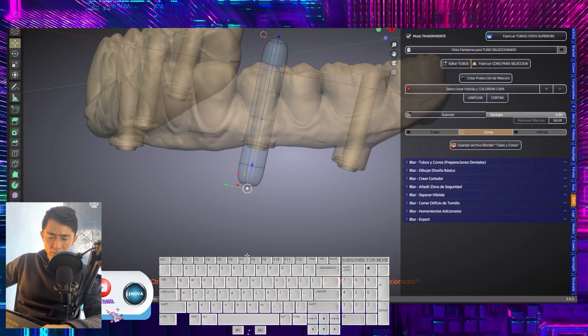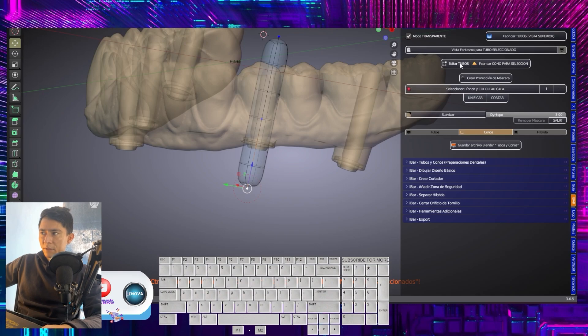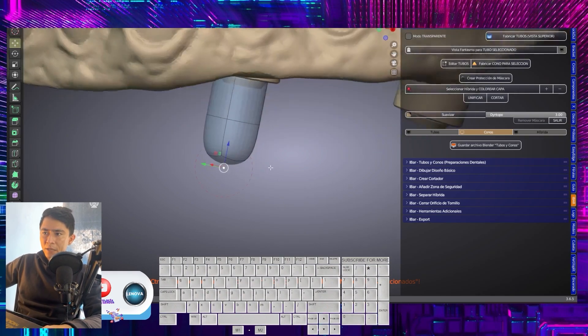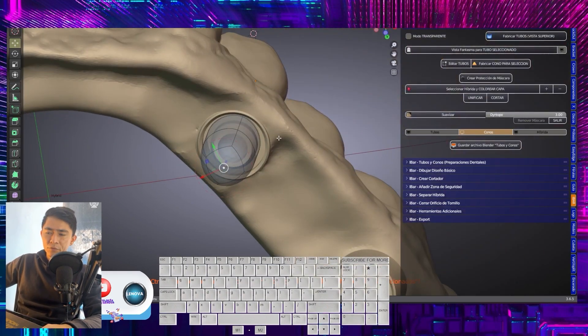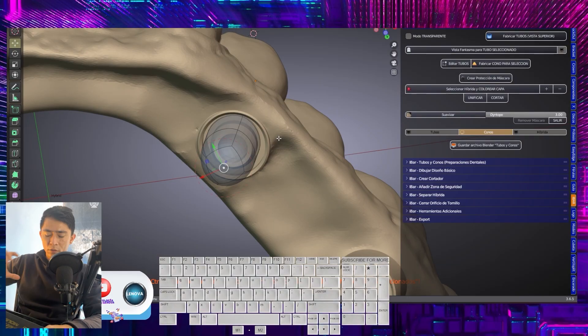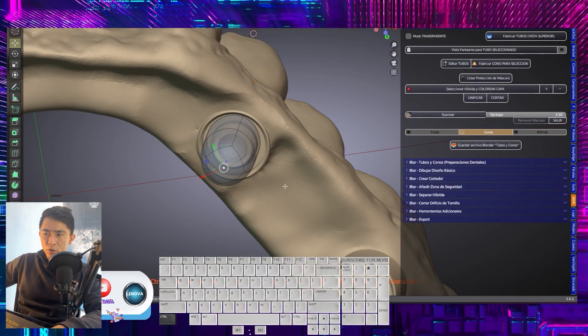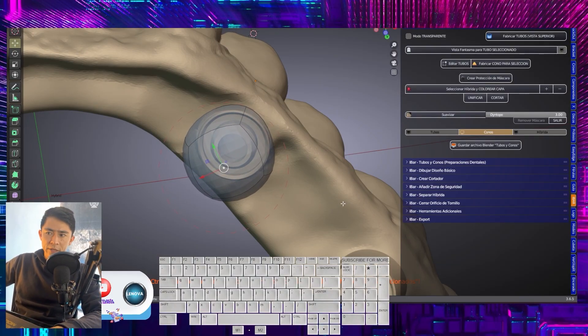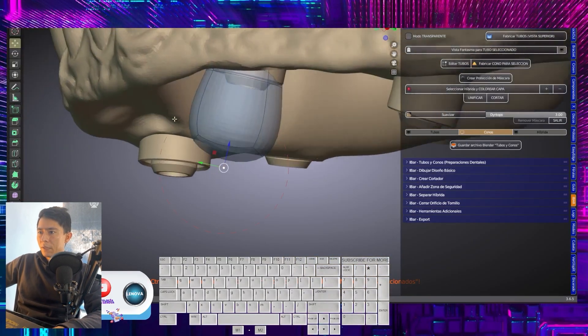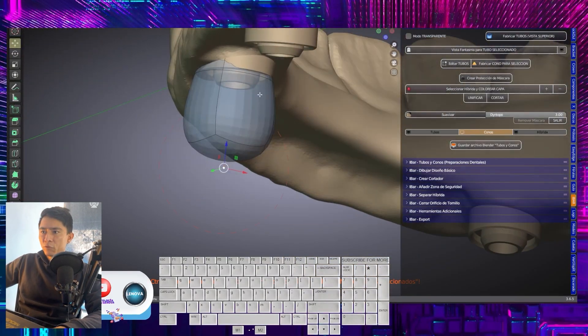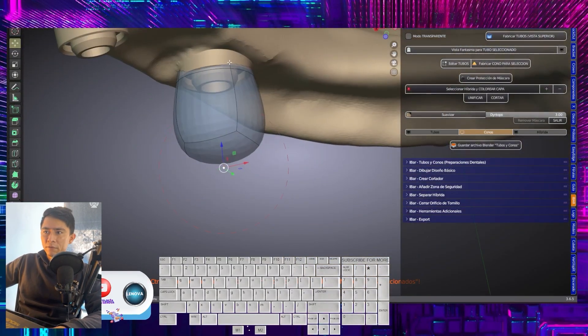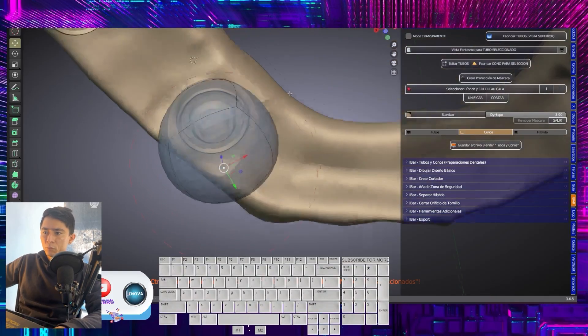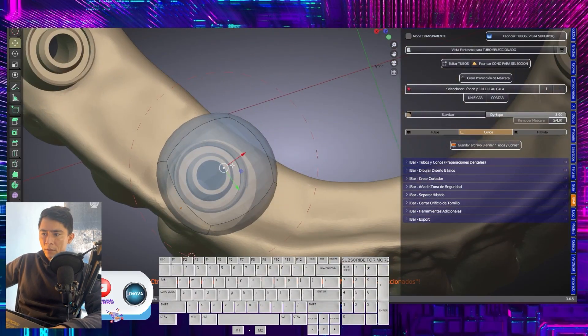We will leave the lower node short. There is no need to leave it so low. And now, here we must create a cone. We will press Ctrl A. We increase the diameter and we must cover all these exposed areas. Again, Ctrl A, cover very well.